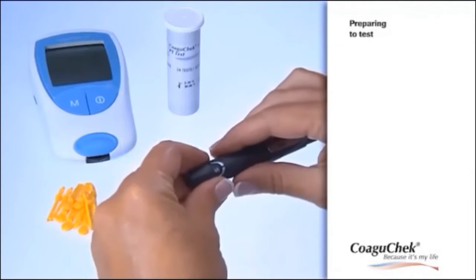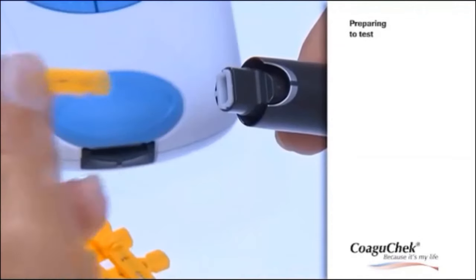Before you start testing, please wash your hands with soap and warm water and dry thoroughly.